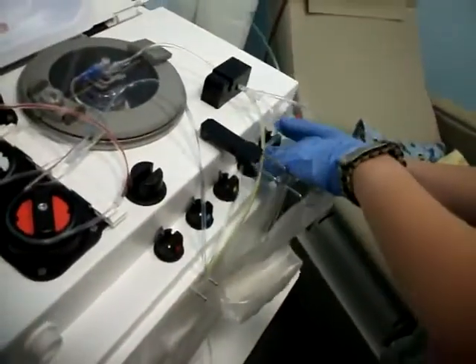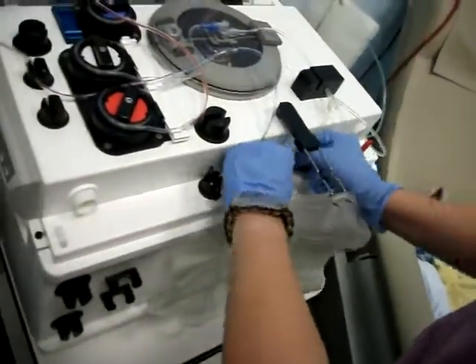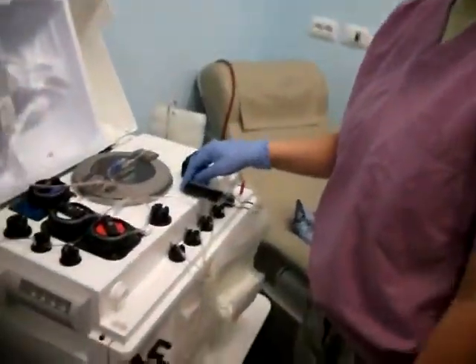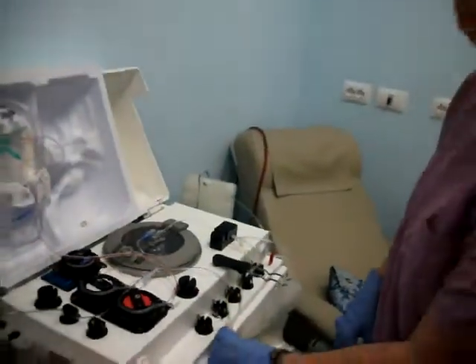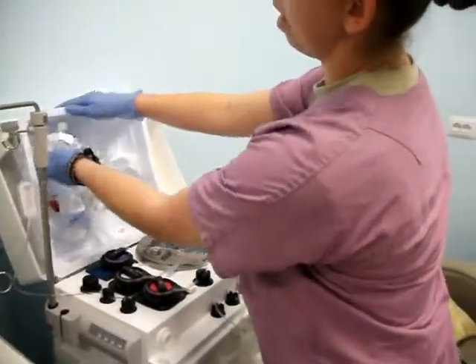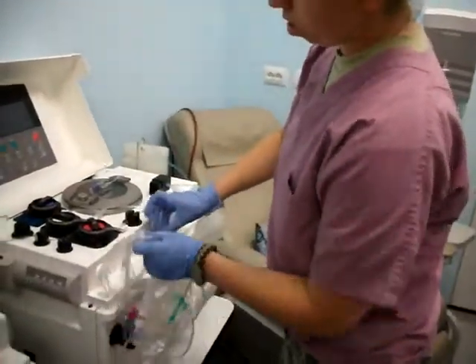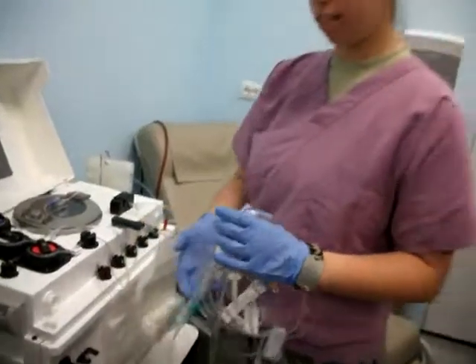Put everything that's pretty much color coded. With this blue line here, you want to make sure that it doesn't touch the weigher arm — that can cause problems if it's too close and touching. Go ahead and put your red line on here. Now take the rest of the stuff out and put the red line in there.